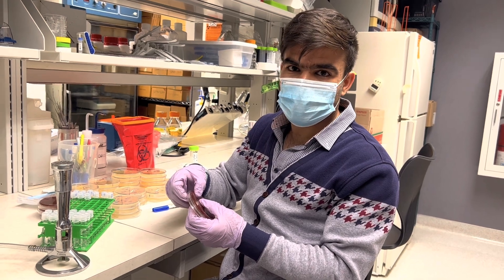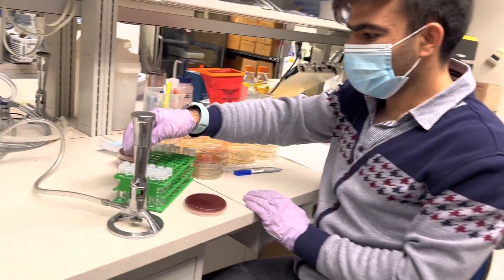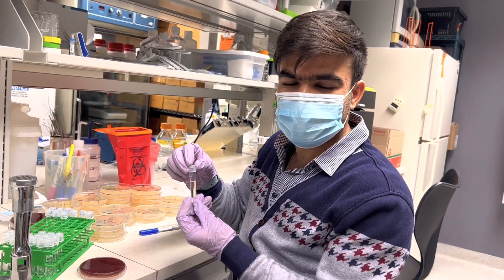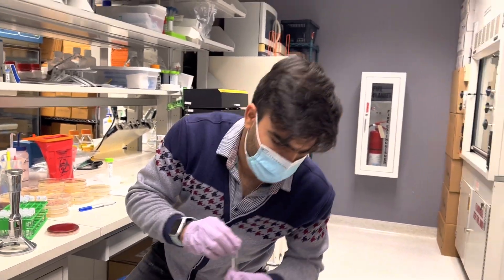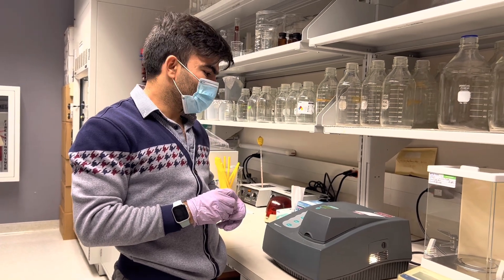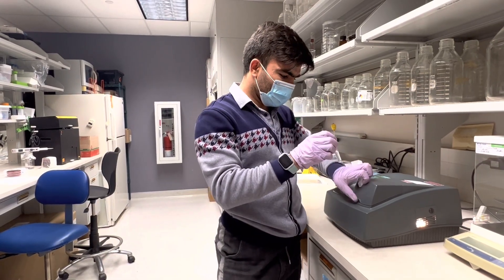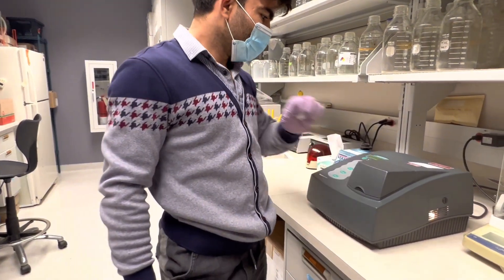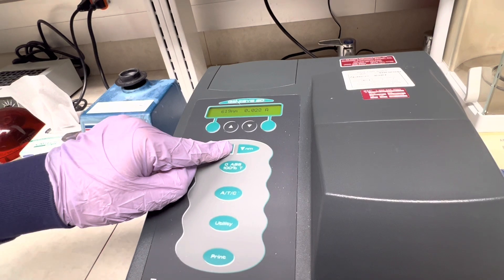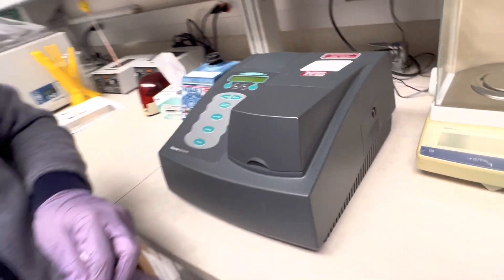So I need to standardize their turbidity or concentration — I need to do a McFarland. First I need a culture tube. I put 3 milliliters of double distilled water in this tube, and now I need to set the McFarland standard machine to blank in order to read the bacterial concentration appropriately. I clean the tube, place it inside the machine, change the nanometer setting from 610 to 625, and then set that to zero — this sets the machine to blank.